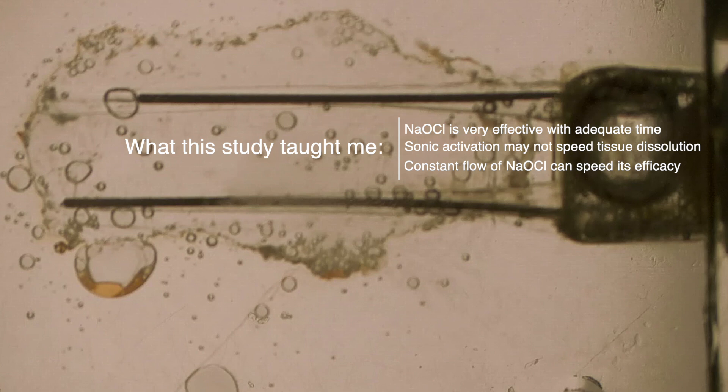I found that sonic activation may not speed tissue dissolution. I was surprised to see less of an effect from strong sonic activation than I expected.